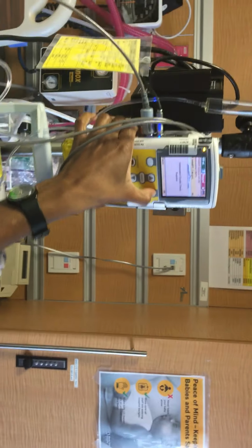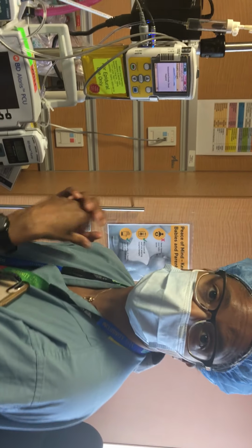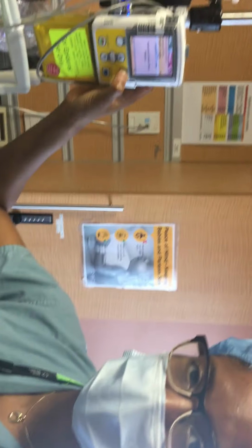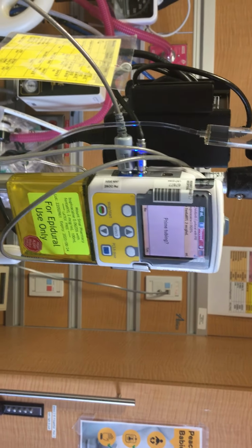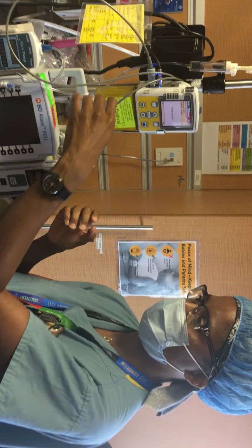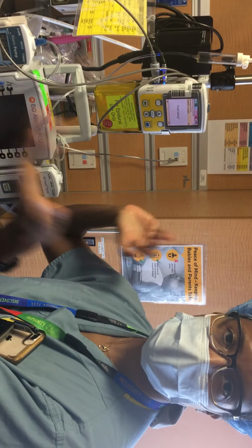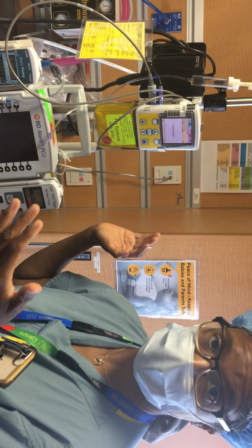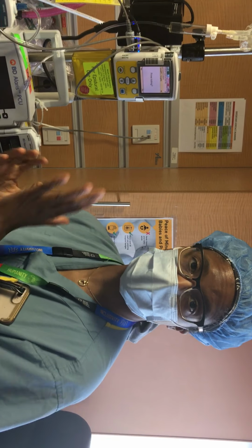And then the next step is to have someone else double check usually. And usually if you do it quickly, the anesthesia is in the room, they can just double check, or another midwife or a nurse. You hit okay, and then priming the tubing is the next step, which we won't do here. But if you need to prime the tubing and bring the fluid down to the end of your line, then you would click yes or no, and then when you're done, it'll say, are you done? And you'll say yes, and then you start. Okay, so that's how the pump works at our hospital.